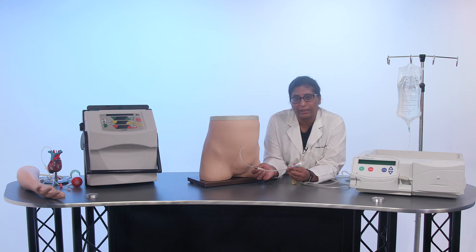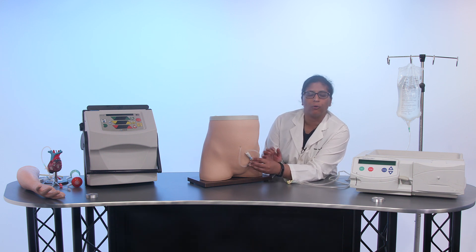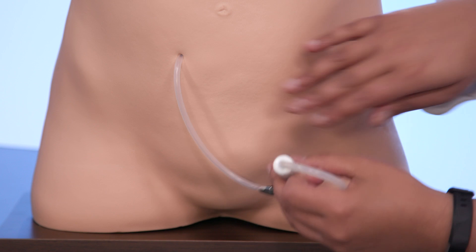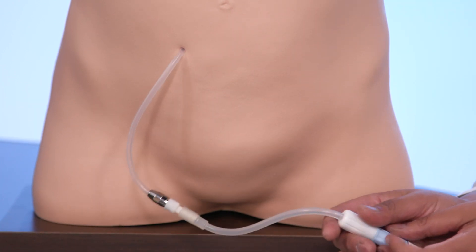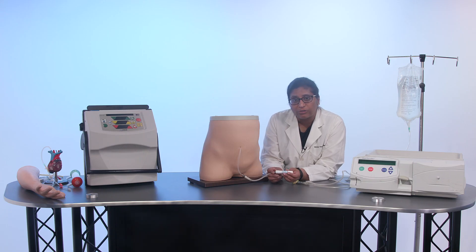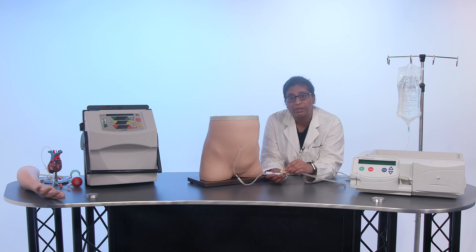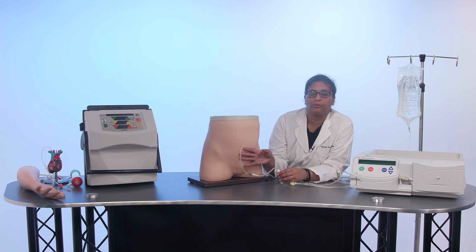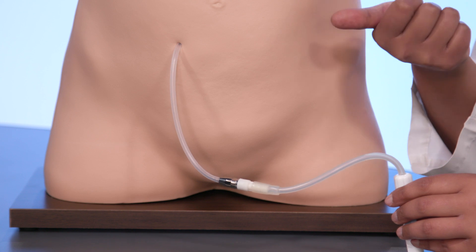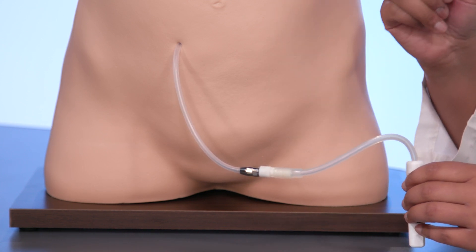Looking at our peritoneal dialysis catheter model, there is a portion of tubing that is always outside of the body. People typically have this coiled up underneath a gauze or a belt so it's not getting in the way. The catheter is anchored just underneath the skin surface in two places, and the rest floats freely in the abdomen. During exchanges, you unroll it and hook it up to the different ports. Because the catheter is in the lower abdomen, you have to be careful with soaking — no tub baths or hot tubs. Salt water is okay, but not swimming in a general pool.